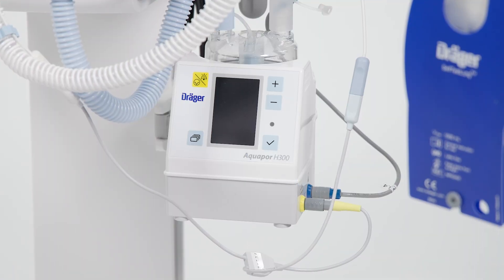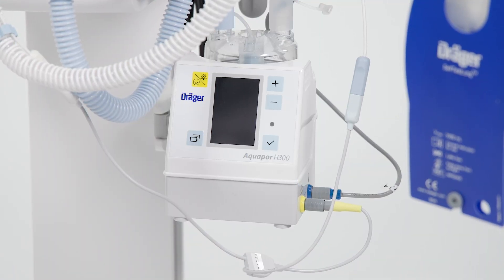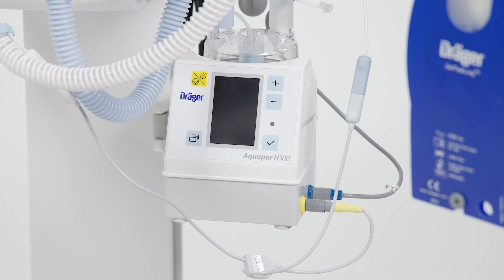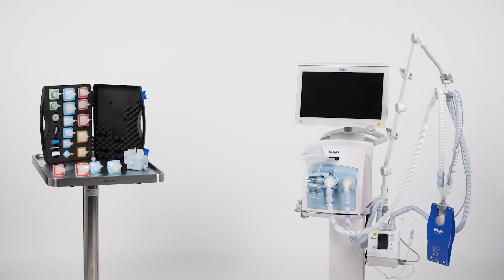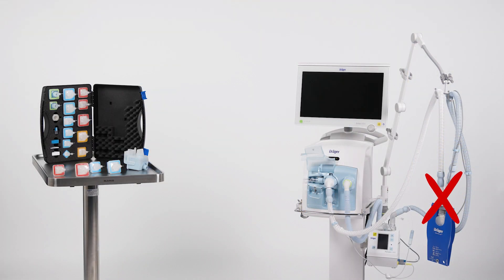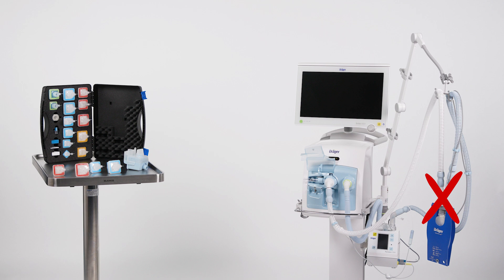In the first application scenario, active humidification is used. In this setup, no patient-side filter is used so that the active humidification performance of the system is not compromised and so as not to unnecessarily increase the patient's work of breathing.